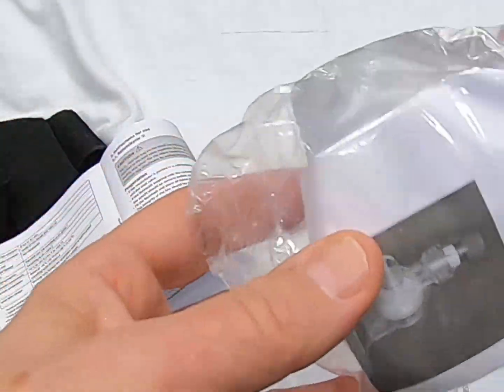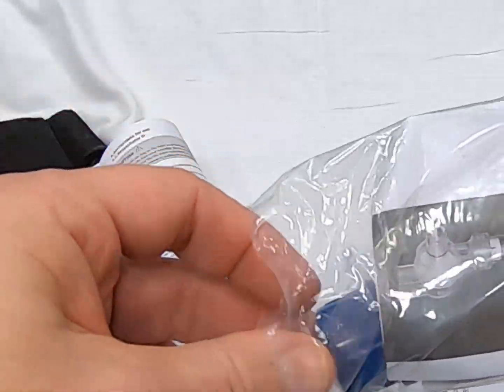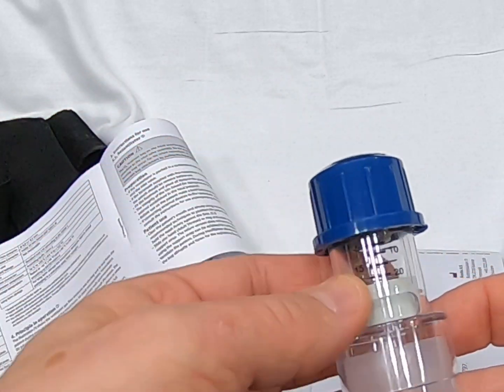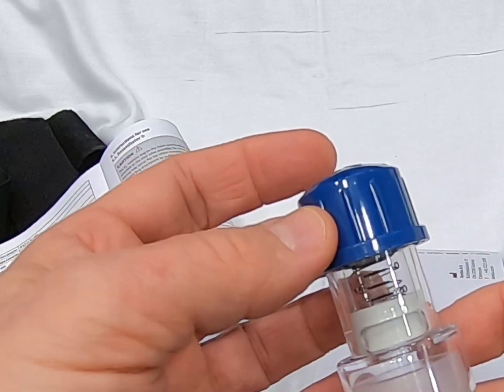When you go back to the PEEP valve, that's why it is starting off at at least five. This allows you to increase those pressures, so we would have at least a minimum of five, probably bumping that up to somewhere close to eight to ten.